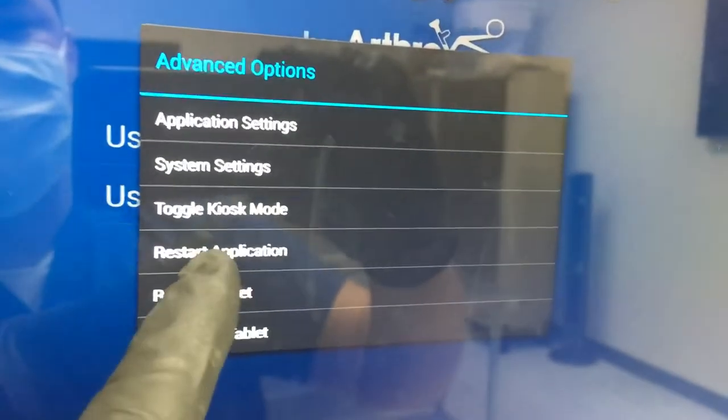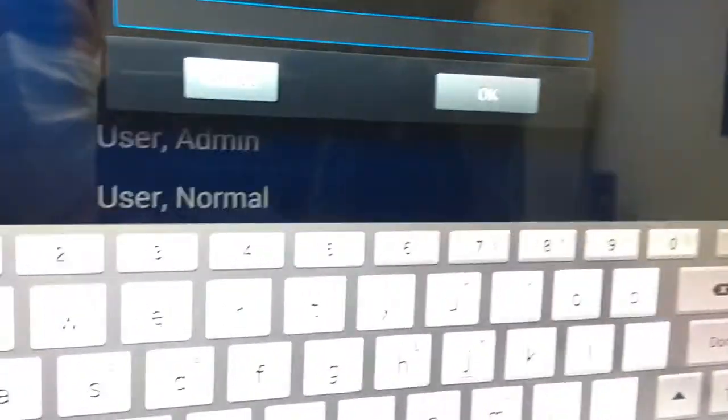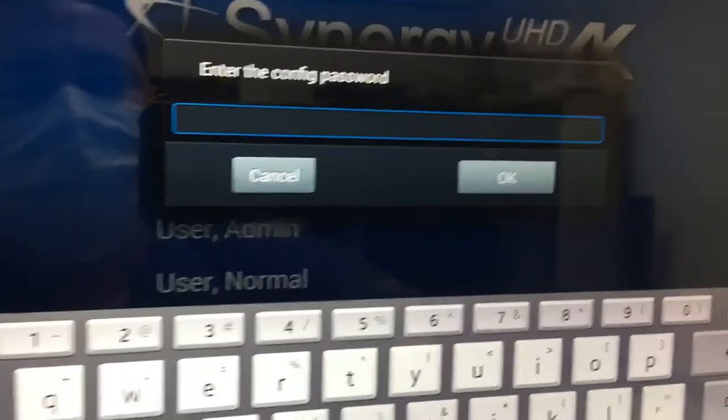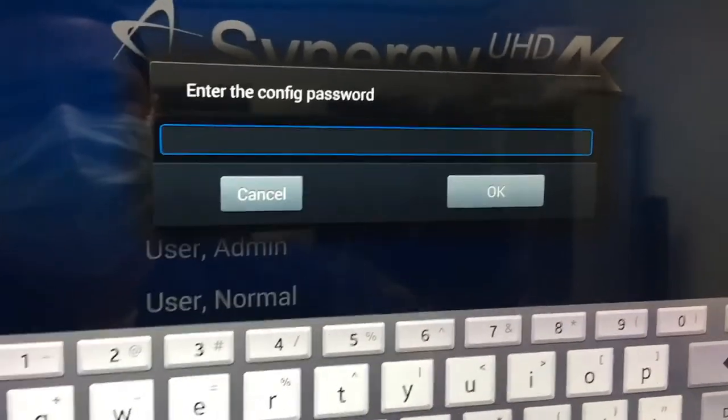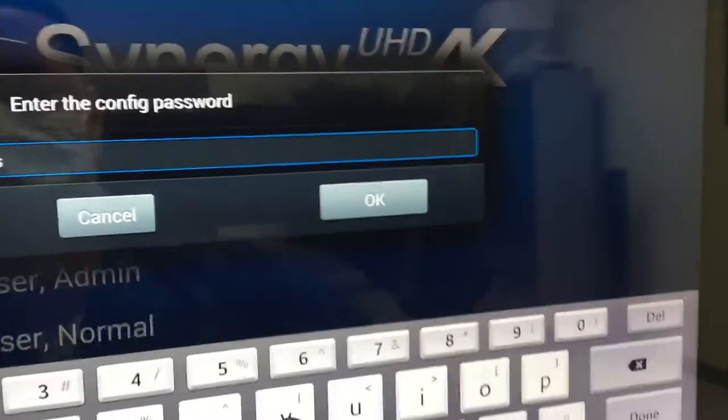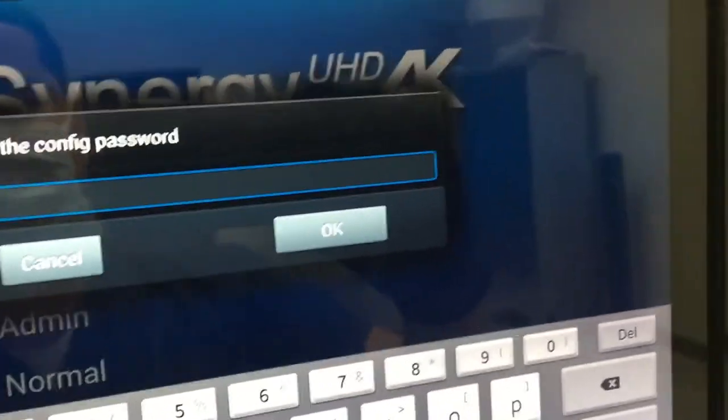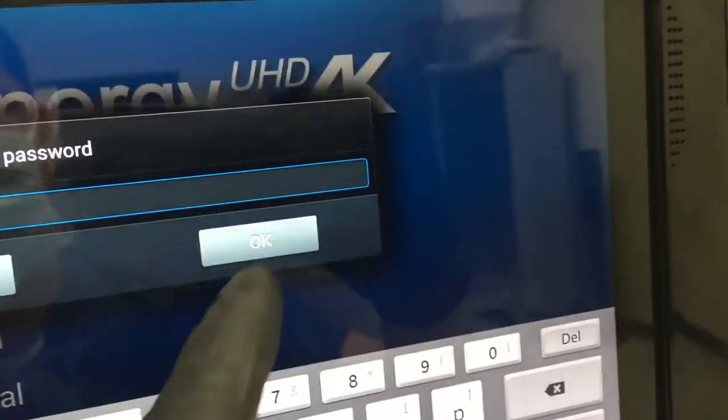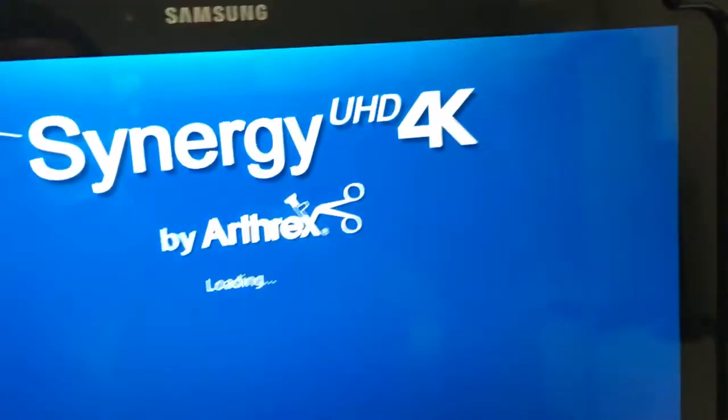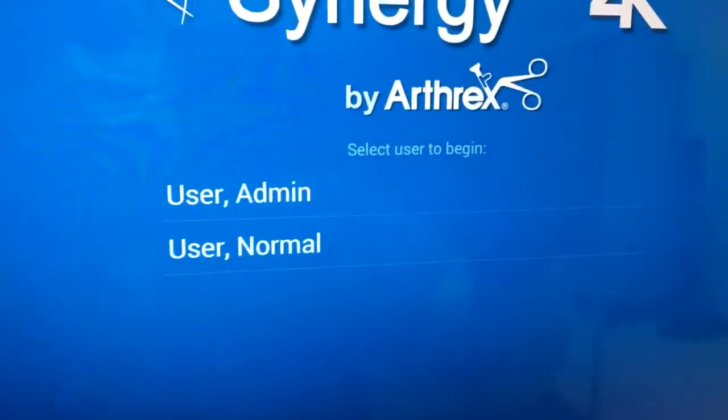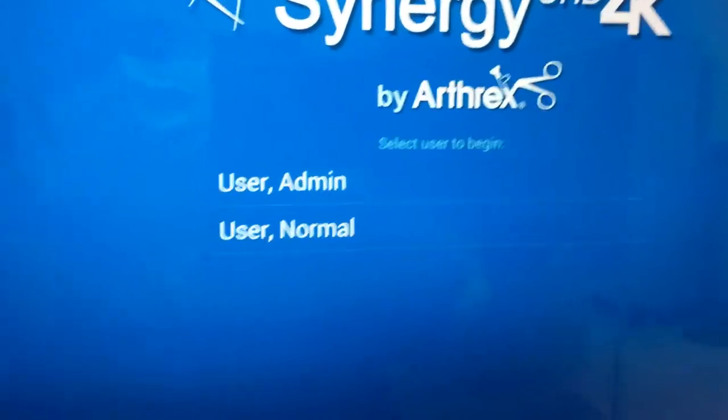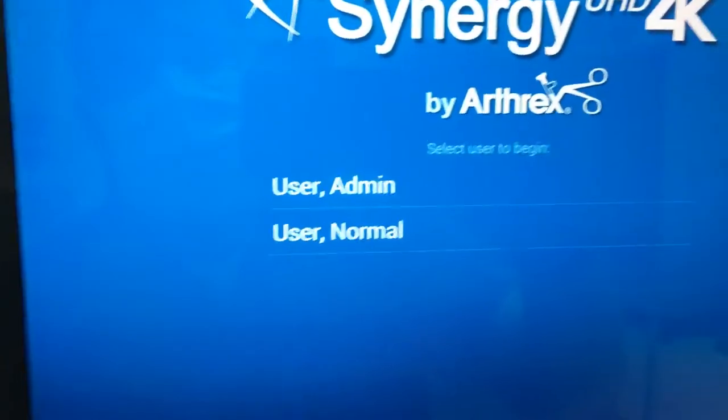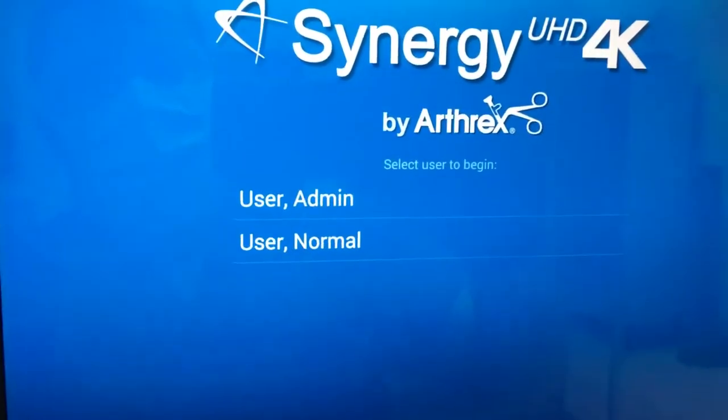When you hit that, if you had a case going, the password on this, just so you know, is always synergy, just lowercase. You see that's reloading, and that's hopefully what you get. It'll connect, you'll get the login screen, or if you're mid-case it would say that you're okay to resume case, at which point you hit okay.